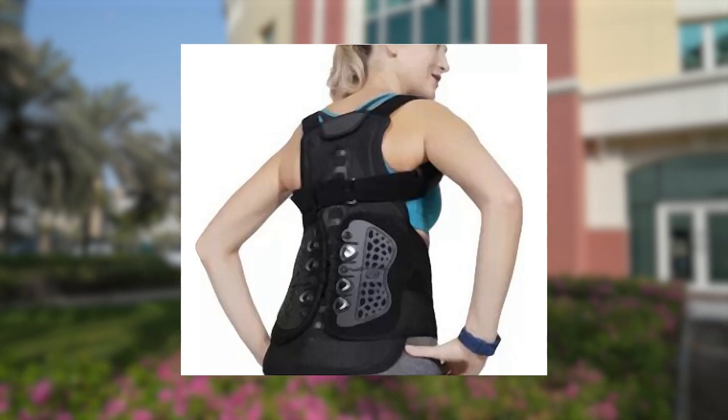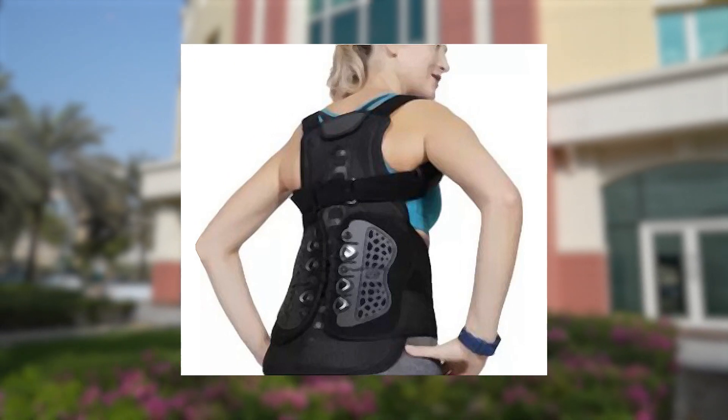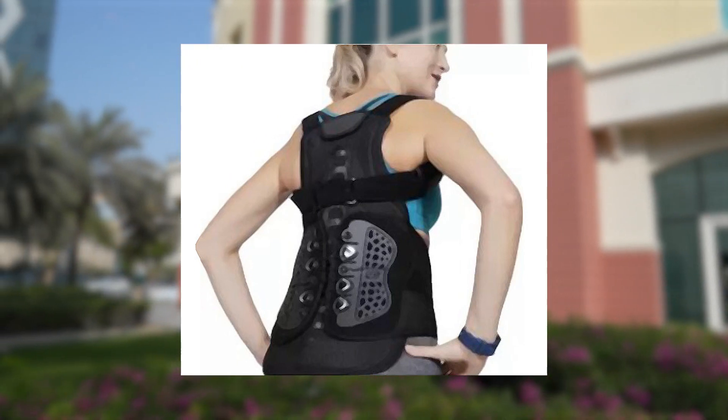If there is a fracture in the lumbar spine from L1 to L5, we give the lumbar spine jacket. If there is a fracture in the thoracic region from T10 to T12, we give the thoracic lumbar brace — the TLSO — to prevent movement and hold the spine in proper position for recovery.